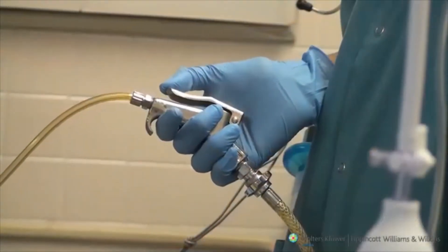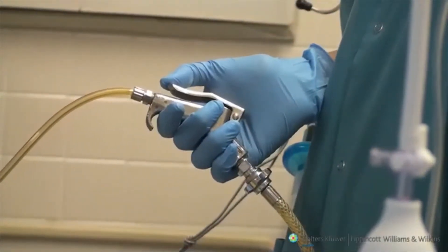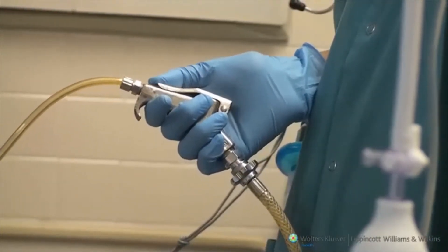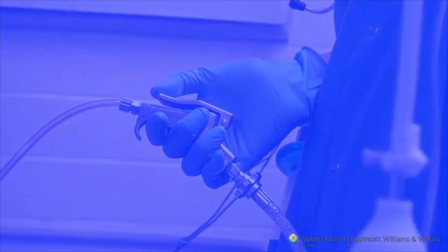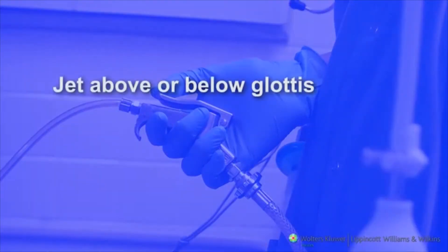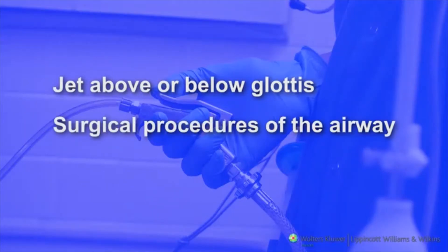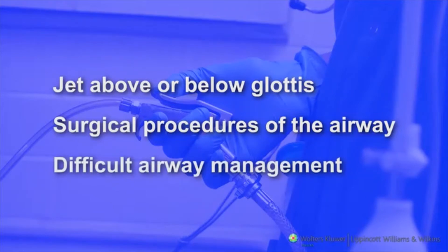A jet ventilator allows for the intermittent administration of high-pressure jets of oxygen, air, or oxygen-air mixtures with entrainment of room air. This device can be used for ventilation with the jet exiting above or below the glottis during surgical procedures of the airway, or it can be used transtracheally during difficult airway management.